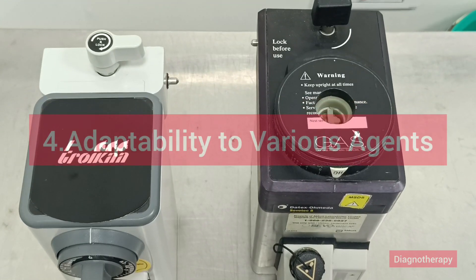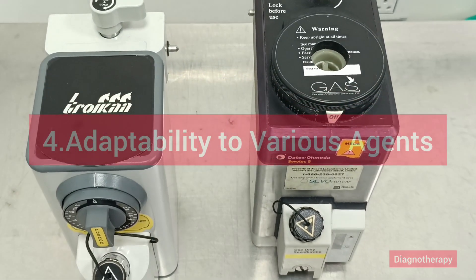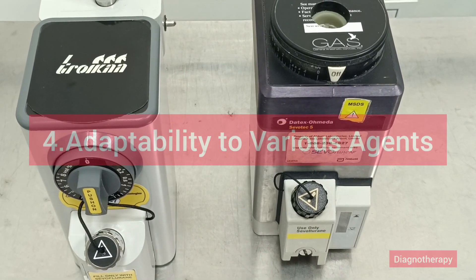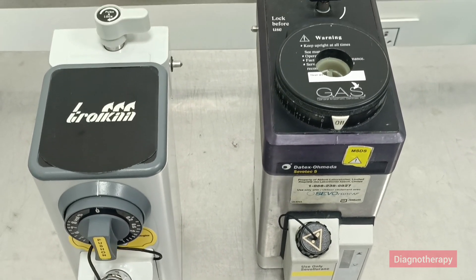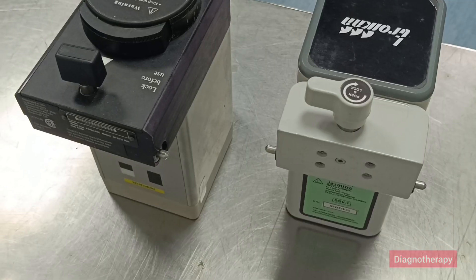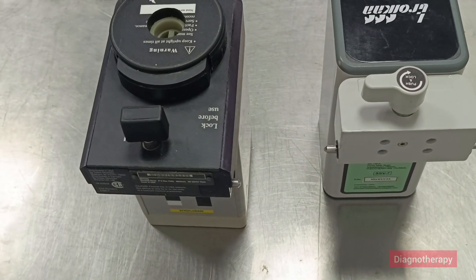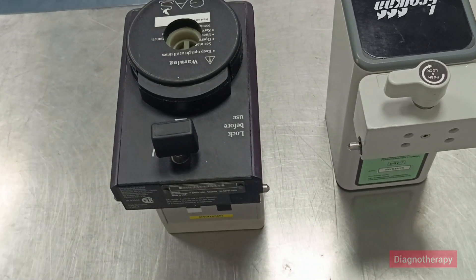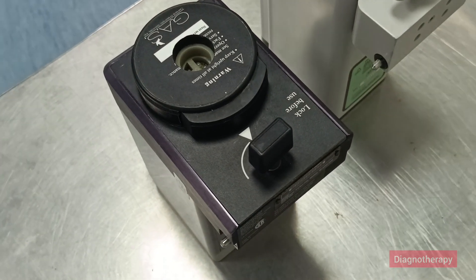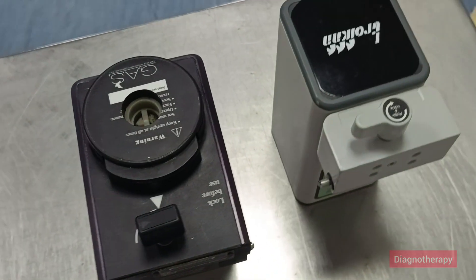One of the notable features is adaptability to various agents. Vaporizers are designed to work with specific anesthetic agents, each of which has unique properties like boiling points and potency. Vaporizers ensure that each agent is vaporized appropriately and delivered in a safe and effective concentration. Some models also allow easy switching between agents, depending on the needs of the procedure.